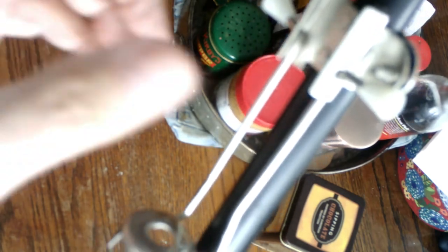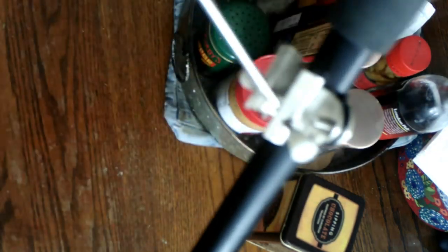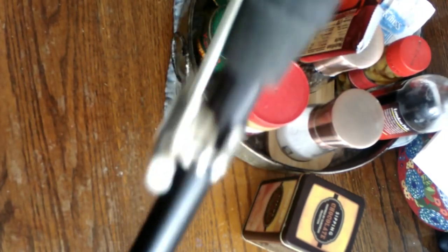When you get ready to use it going out, with the ice grip down, squeeze those and pop it the other way. You're now ready to hike across the Walmart parking lot or into Sam's Club on the ice and snow. You can walk directly on ice with these cleats on your shoes.